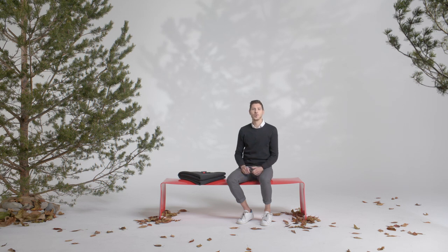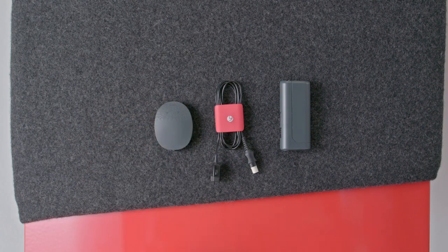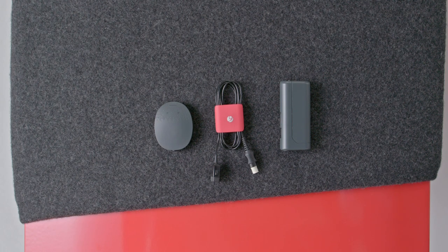For extra power on the go, you can use the Mini Battery Pack with your RONDO 3 audio processor. The Mini Battery Pack can be used with RONDO 3 to give power on the go and to connect to FM systems.